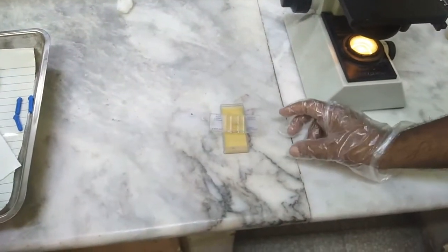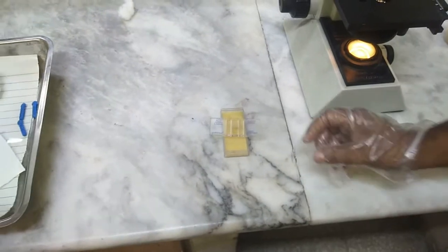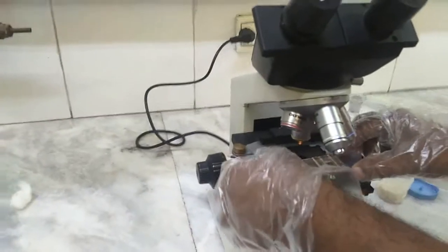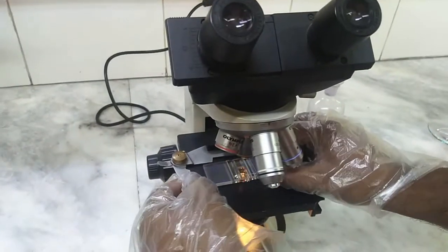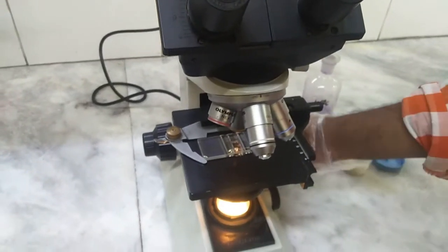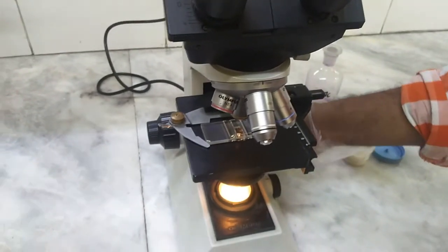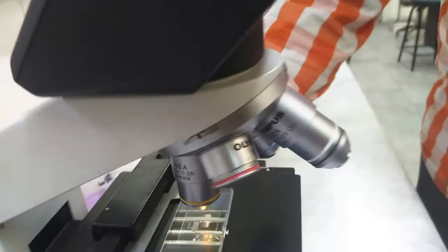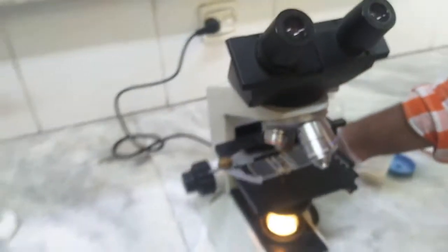The last step is that we have to adjust the charged Neubauer chamber under the microscope. The Neubauer chamber will be focused under the 10x lens and the central area of the Neubauer chamber will be focused. After that, you will count the cells in the Neubauer chamber.